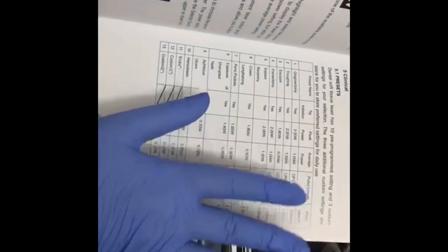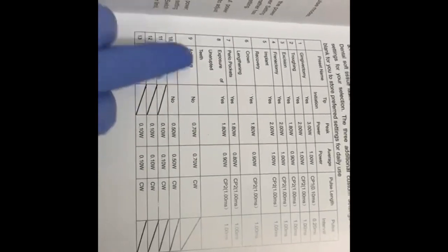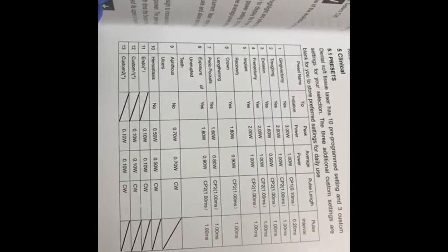Timing is all preset. It's written where it's used in exposure and unerupted teeth implant recovery.